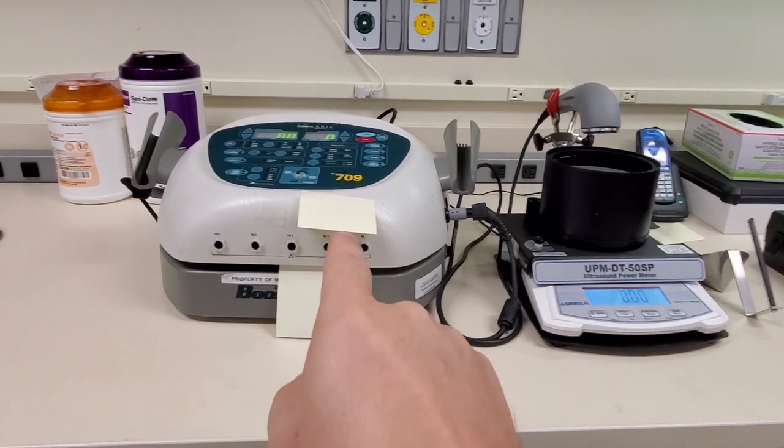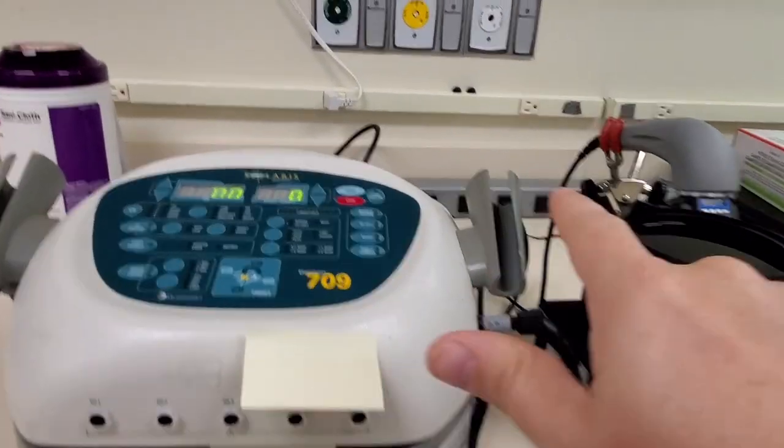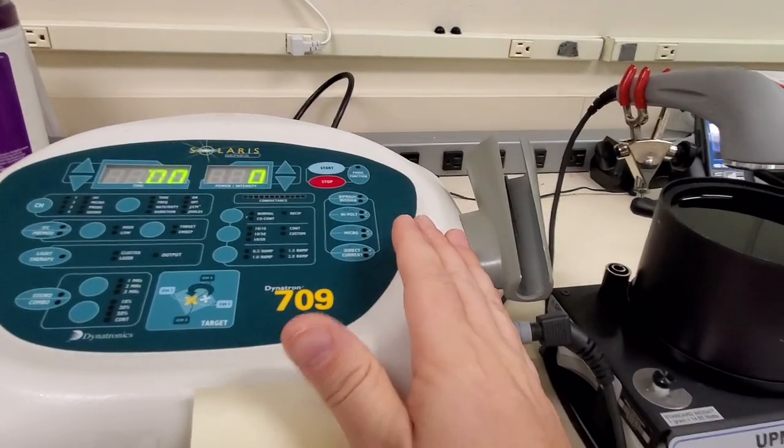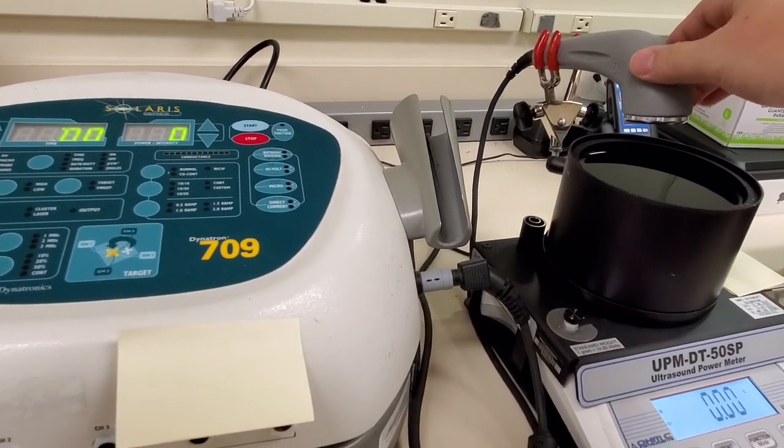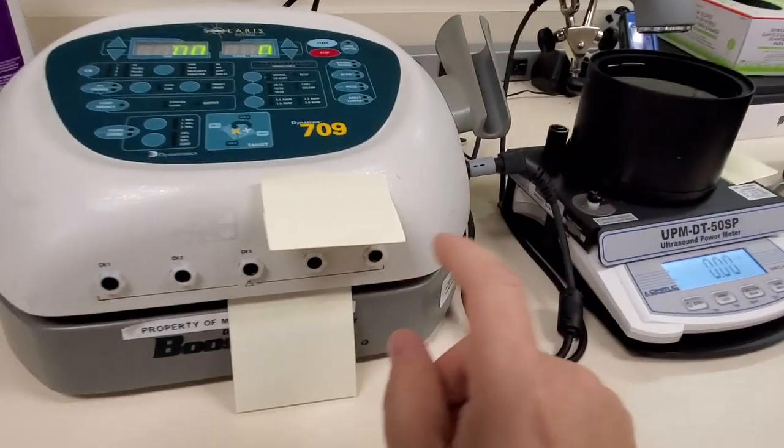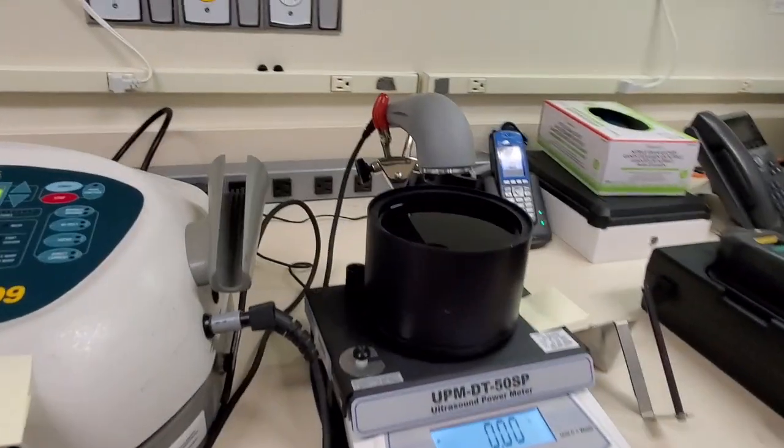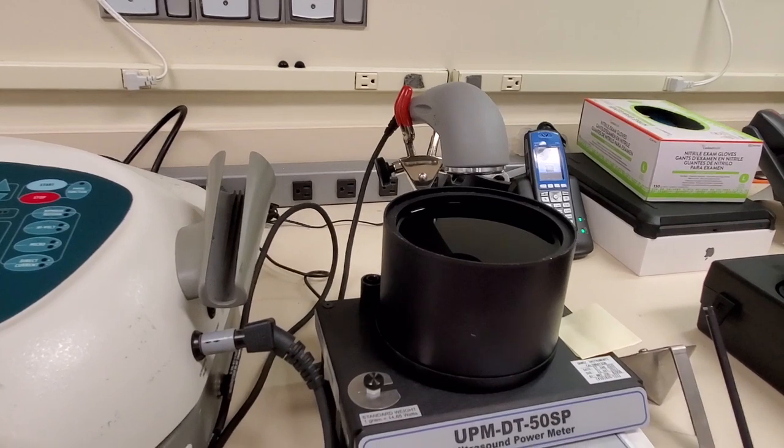This right here is an ultrasonic therapy system. It consists of your base unit which is a generator, and down here is a crystal head. There are various different heads that will plug into the port and they provide ultrasound energy into the body.